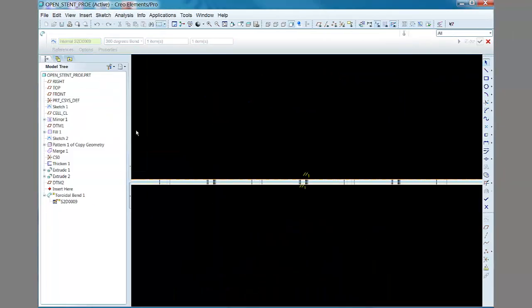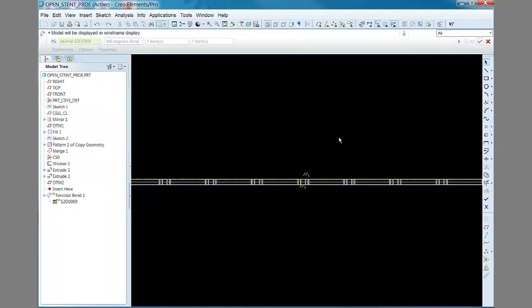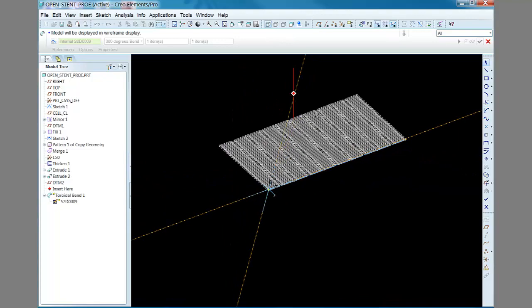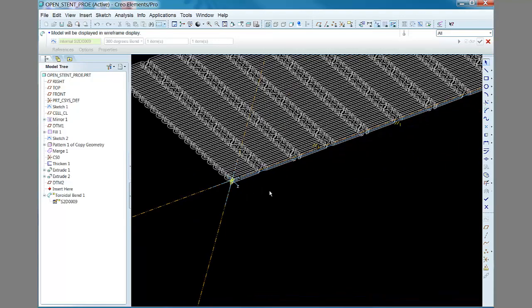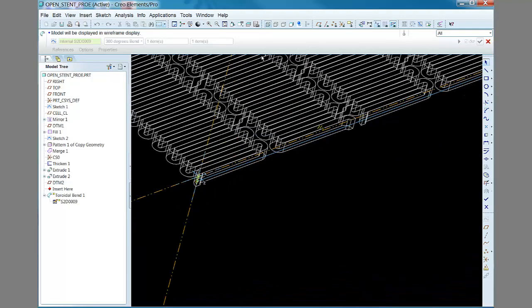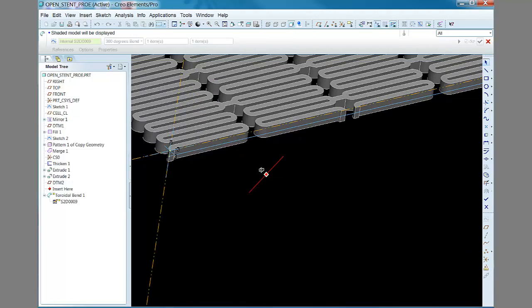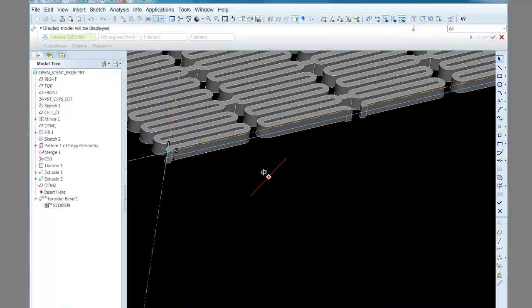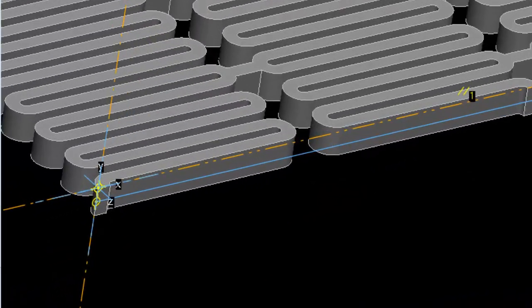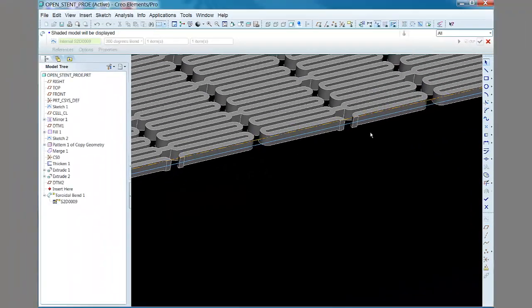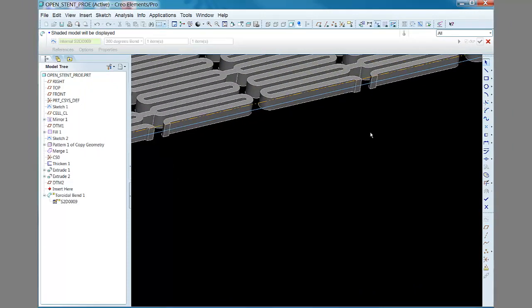A sketch normal to the y or theta direction is required for the feature definition. The x direction of the sketched coordinate, shown here, delineates the outer diameter or outer surface of the bend feature, while the sketched line describes a sort of neutral axis.